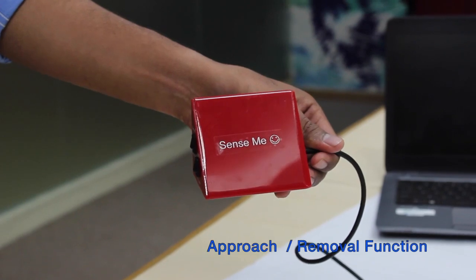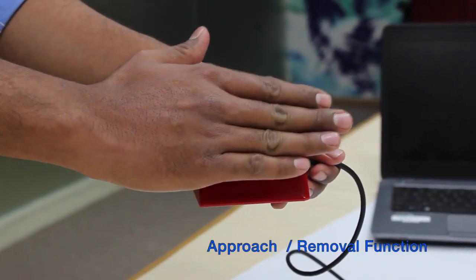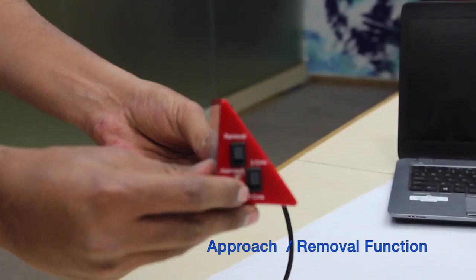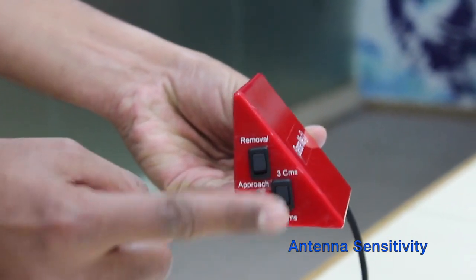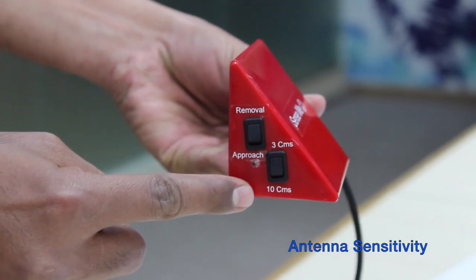Some children prefer to generate left click when the hand is approaching the antenna, and some prefer to generate left click when the hand is moving away from the antenna. This is configured using the approach or removal switch. The other switch is to configure antenna sensitivity. Using this switch, the antenna can sense the hand either at 3 centimeters or 10 centimeters.